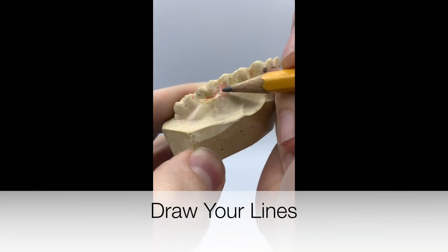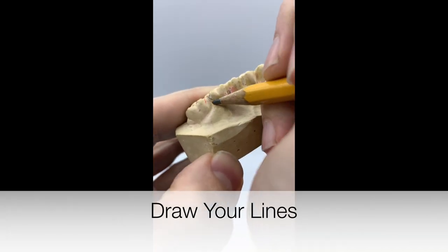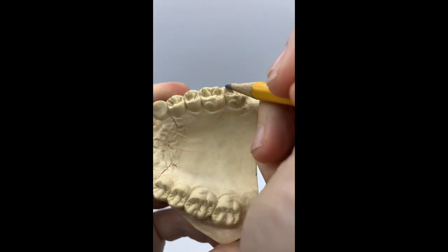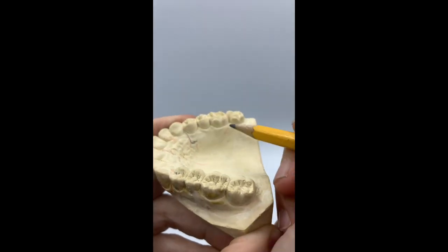You want to start off by drawing your lines and where your wire is going to go, and then finish into the palate.